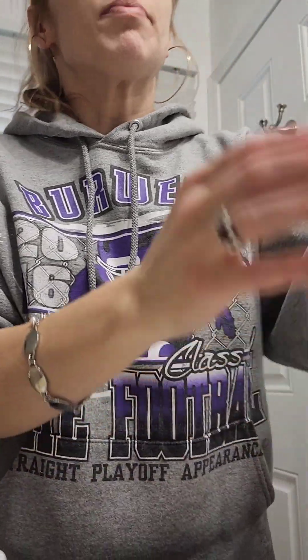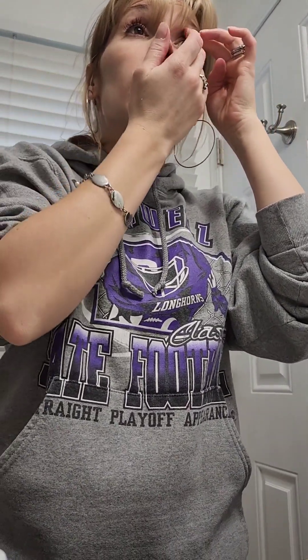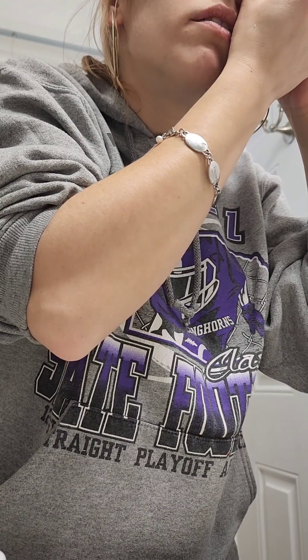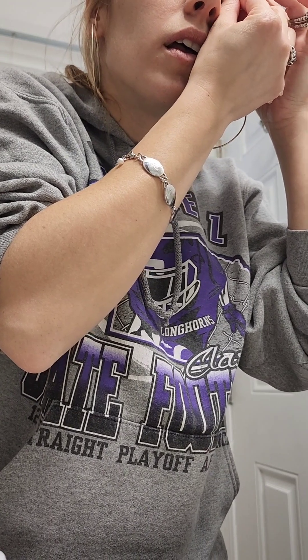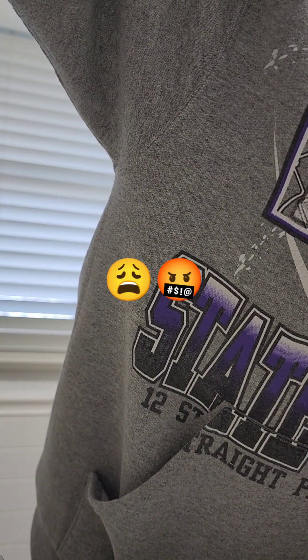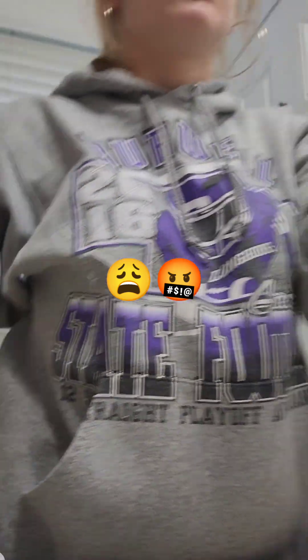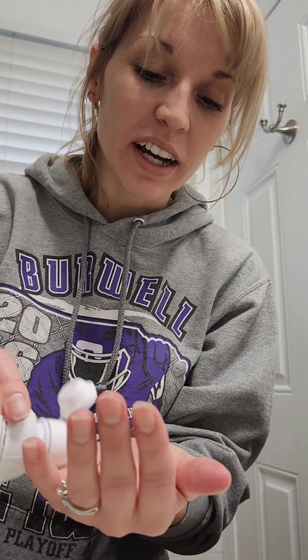Oh, that hurt. This is dumb. I should not be making a video right now. I was just thinking, oh hey, I'll make a video of my first time really wearing them. These trials pretty much suck, because they don't feel like they're my real prescription at all. I feel worse than when I don't have my glasses on. How do people do this? This is so hard. How am I going to do this when I'm always in a rush? I'm always almost late for everything I do.